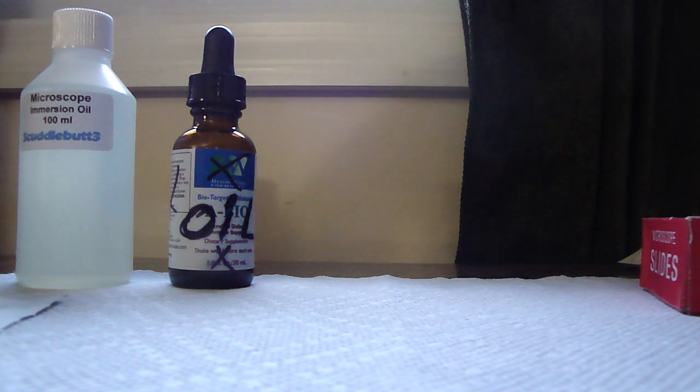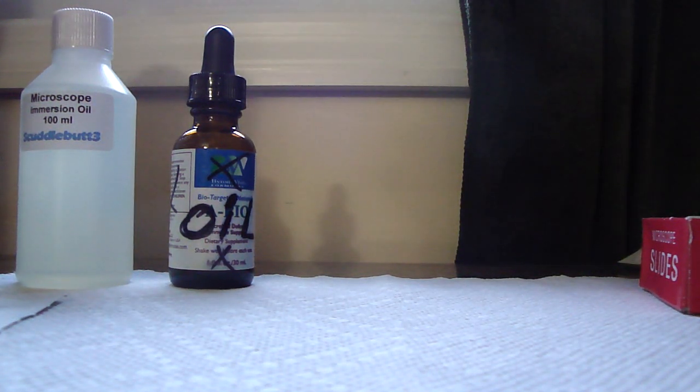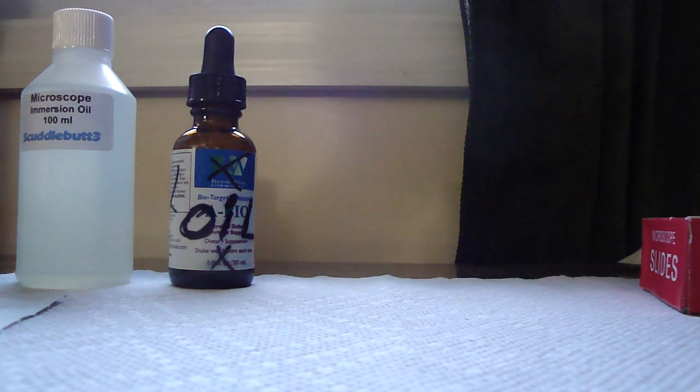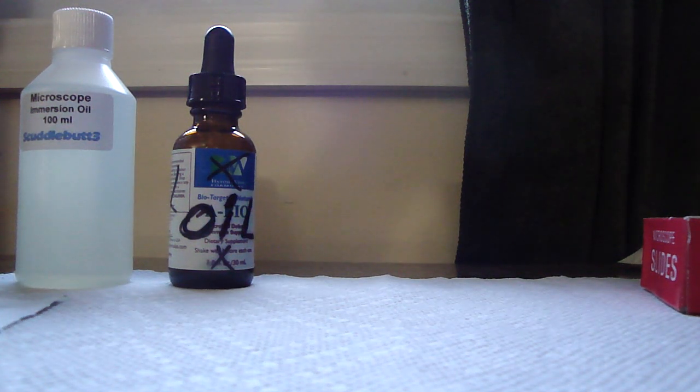And there's a little bit of a secret as to how to see it more readily, as opposed to you having to spend a lot of time hunting and looking for it. So first I'm going to show you how to make the blood smear, and then I'm going to show you that secret. And then I'm going to share with you another hidden secret that I have not tried myself but I heard from another doctor.